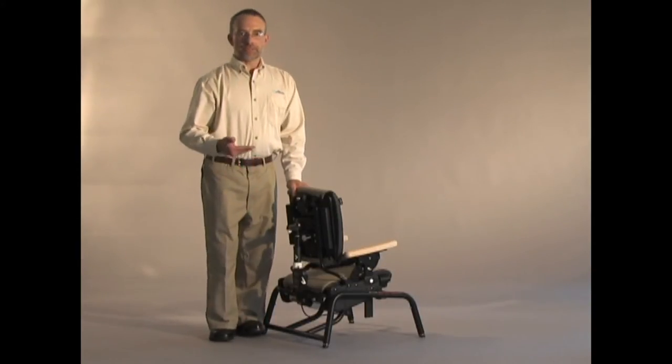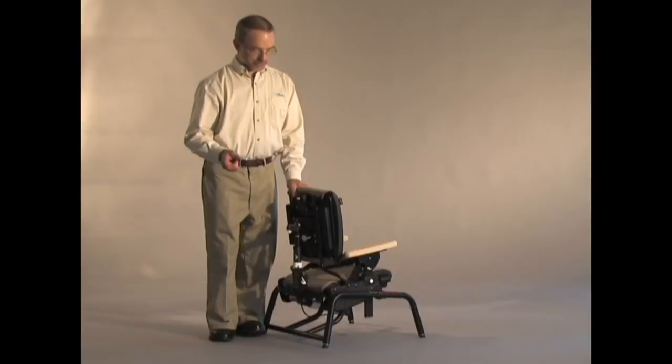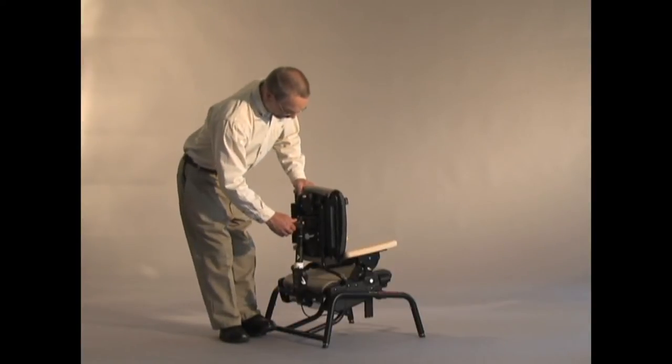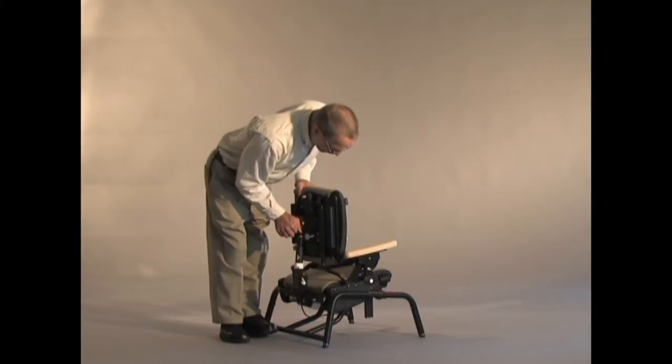Now, this dynamic feature does take about ten degrees of your adjustment stroke in the backrest. So now, when I tilt this all the way forward, I get about five degrees forward, ten degrees back.